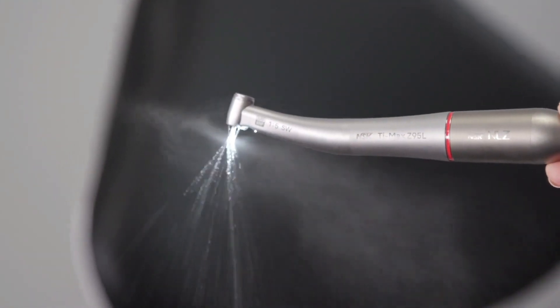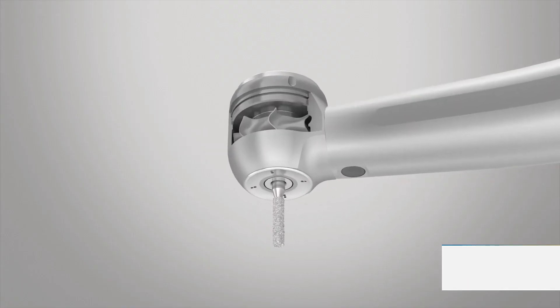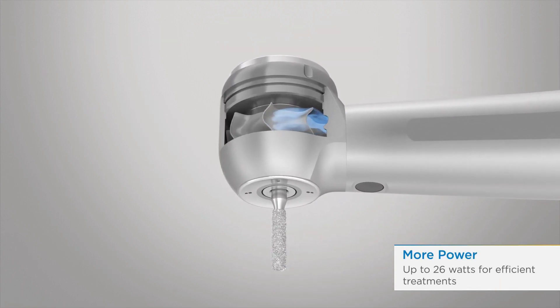The rest of the unit consists of a brushless motor, which receives power from the console through flexible tubing and handpiece attachments that achieve different speeds through their internal gear design.